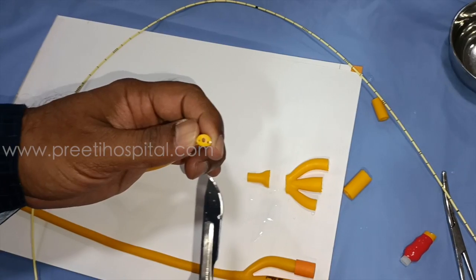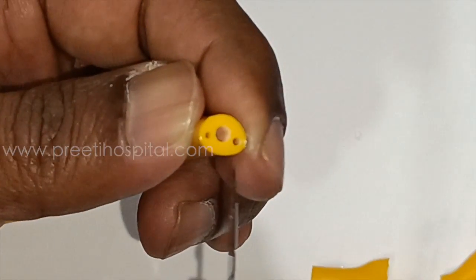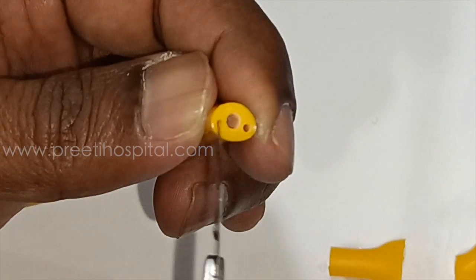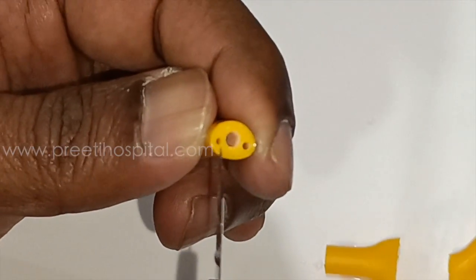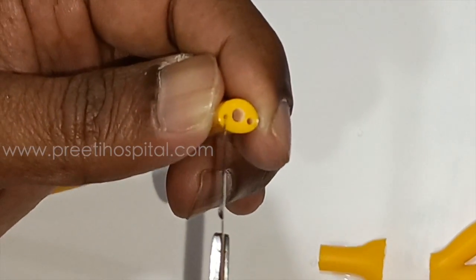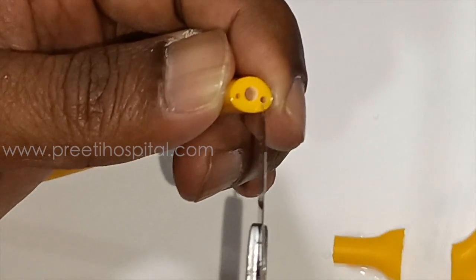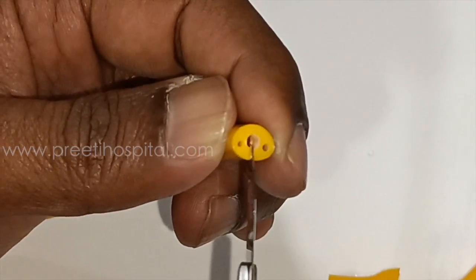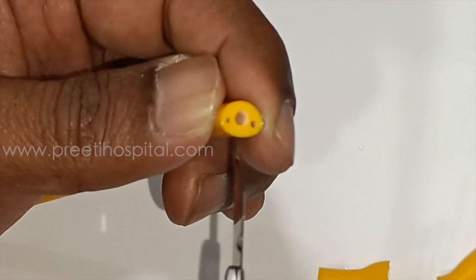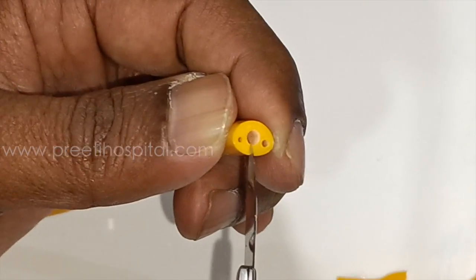This is the original cross-section, where the central part where the water or urine is coming out is bigger. And then the next two channels are almost equal size. That means the channel for inflation of the balloon and the channel for water are the same size. So the amount of water that comes out from the central channel is only bigger.